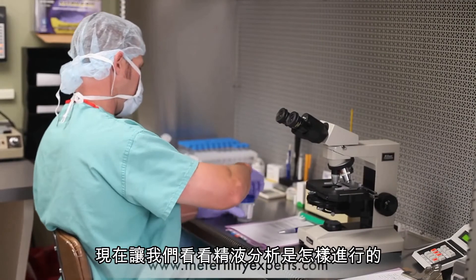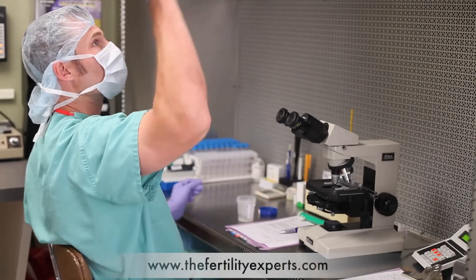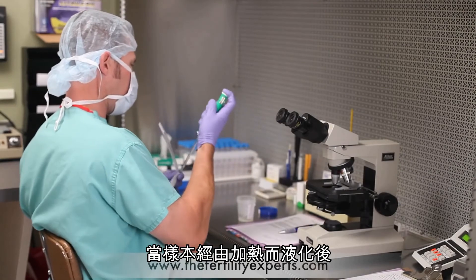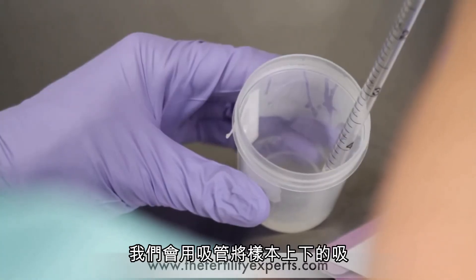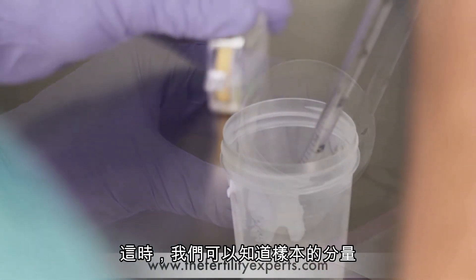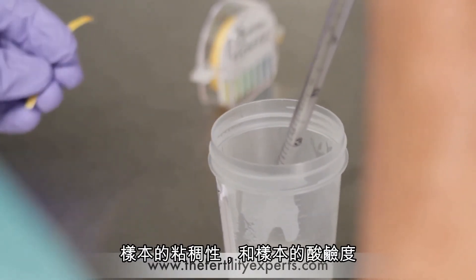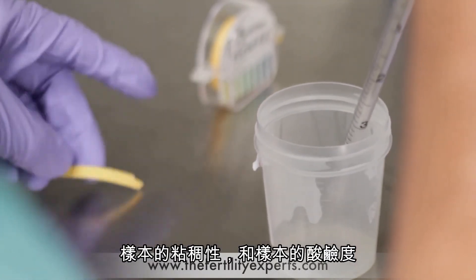Now let's take a look at how we perform a semen analysis. Once the sample has had a chance to liquefy in the heated stage, we'll begin the macroscopic examination. We begin by gently pipetting the sample up and down, ensuring that it is well mixed. At this time we'll be able to get the volume of the sample, assess the viscosity of the sample, and finally get the pH of the sample.